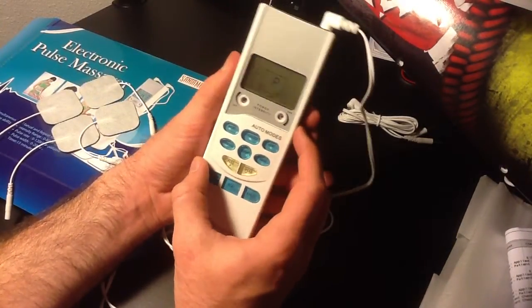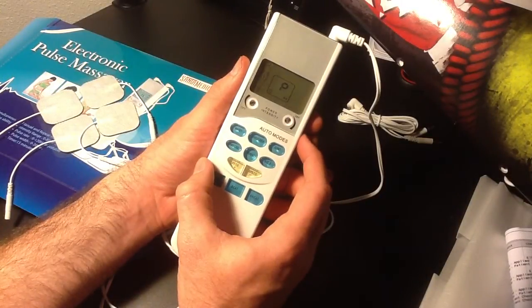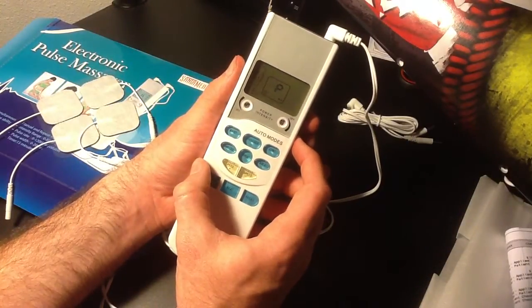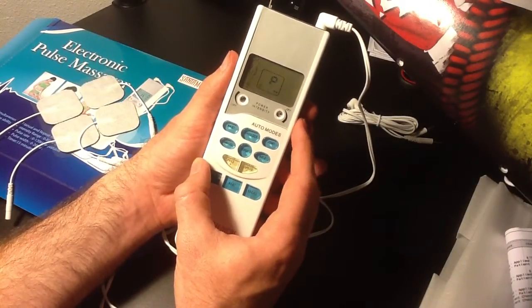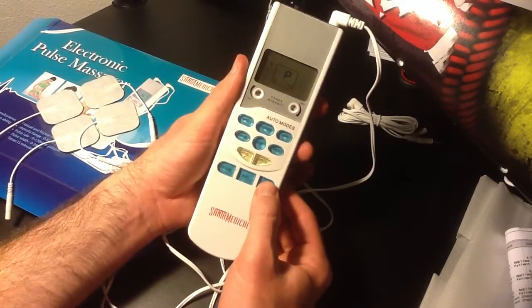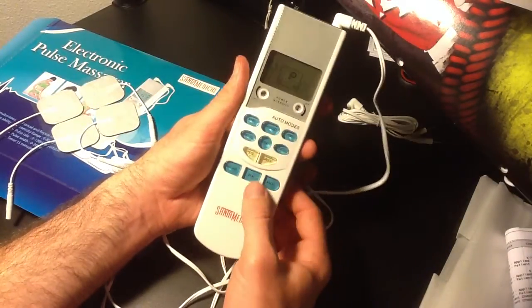What you do is then you swap this guy into the arm position. You've got your different levels of intensity. If you can see in there, there's a six, there's an eight. So I was thinking for sure I could handle an eight or a ten. To engage the unit, find your spot. And then you hit the knead, the beat, the massage, or any one of these to get going.